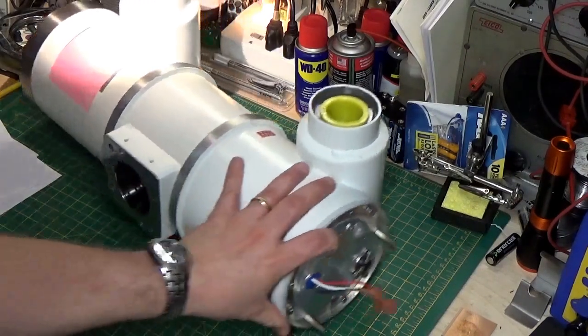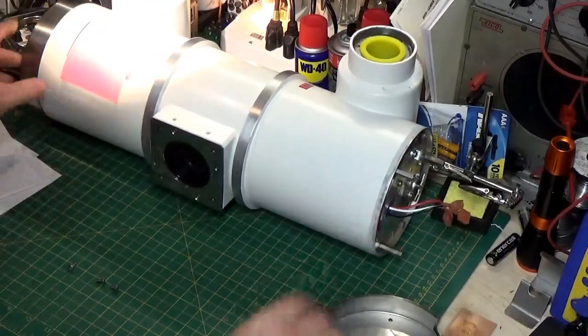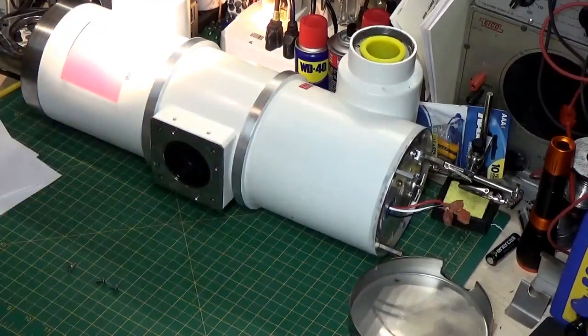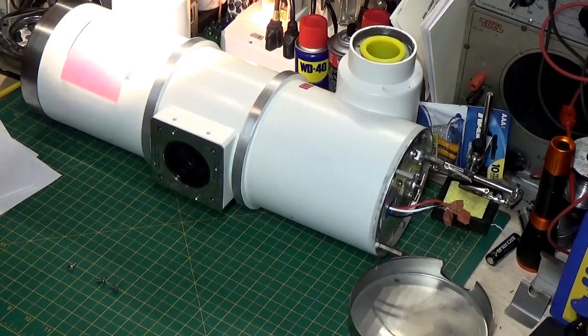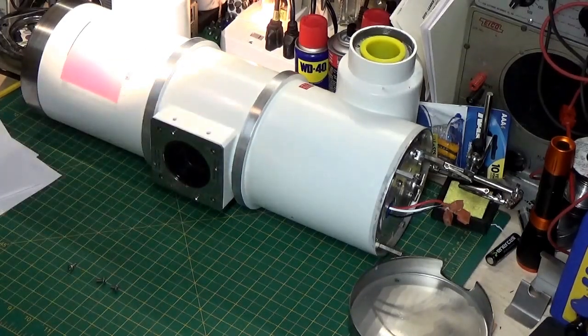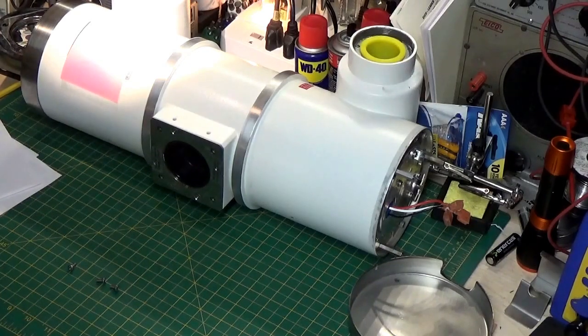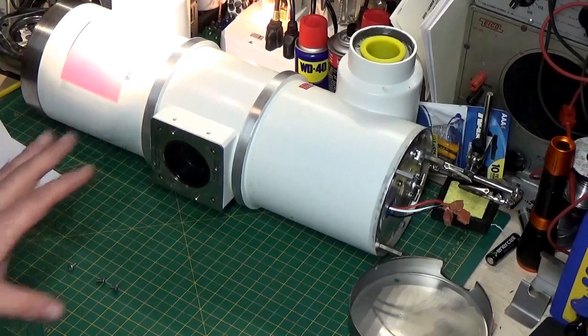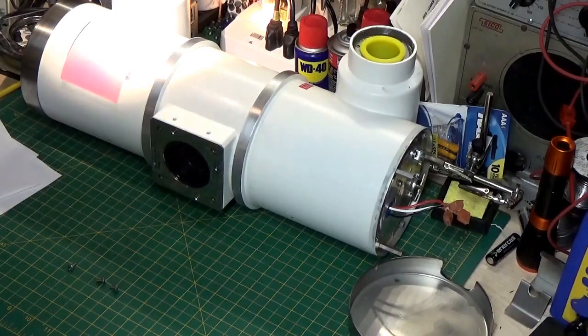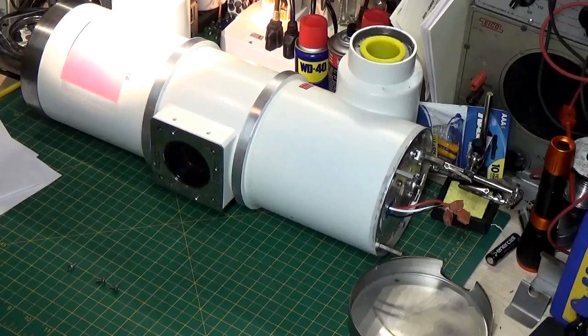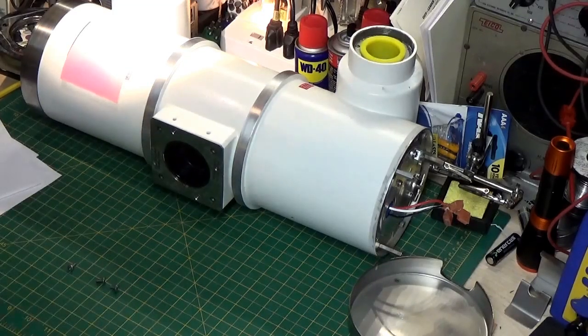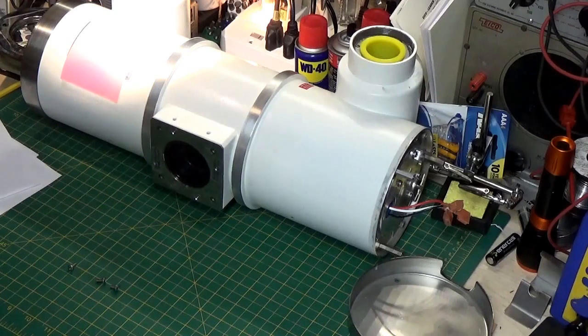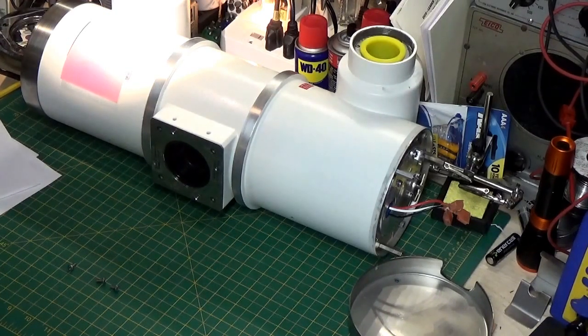There's one last thing I want to show you. I told you in the beginning of this that this is a diode tube. And it is a diode. But some of these are actually triodes. They actually have a control grid in them. There are some instances where we need to pulse the x-ray on and off very quickly, and we use a control grid to do that. Just like you would use a grid in a radio tube or an amplifier tube or something to turn that tube on and off or to control the output of the tube.